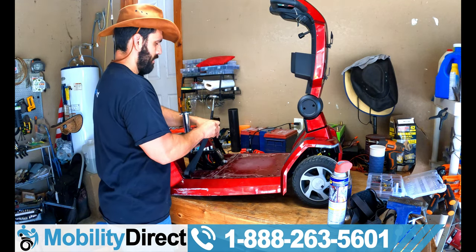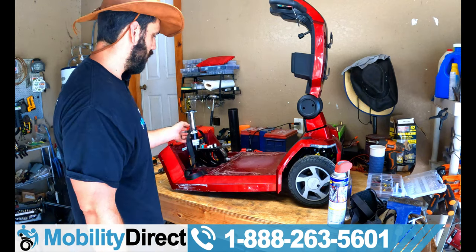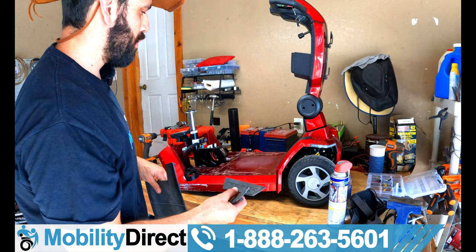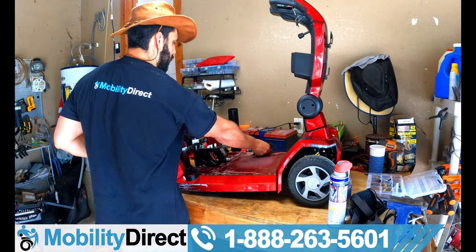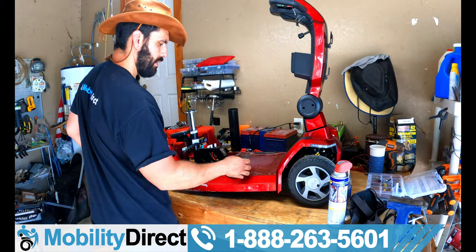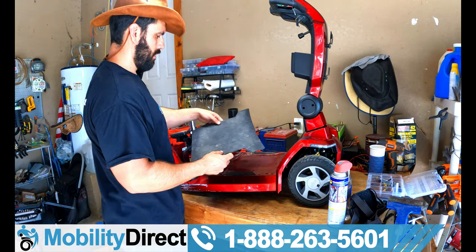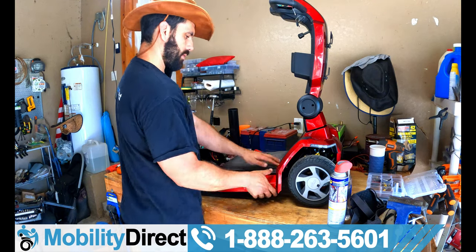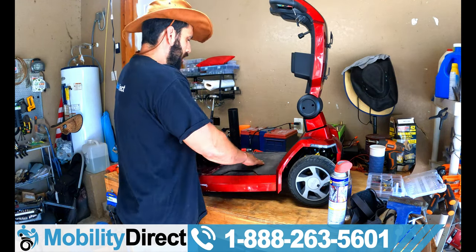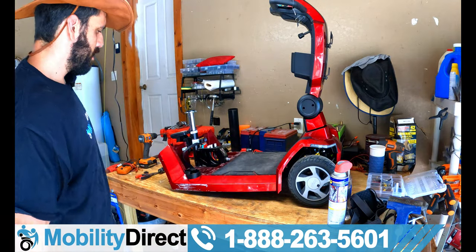If you're not enjoying this video, let me know what I could have done differently. One more thing — we need to re-insert the floor ergonomic foot pads. They just pop right in. There are little nipples that go into the holes — they're only going to fit one way. Push down and the pattern of the floorboard outline will line up the way it should. Push all those nipples through and we're good to go. Let's put it back together — and we're done.